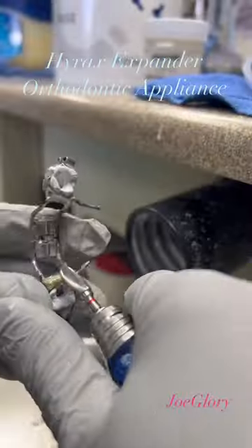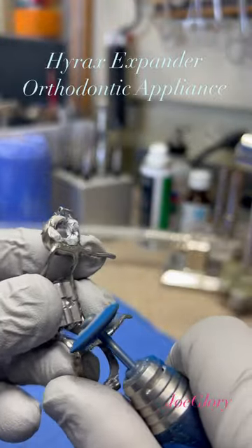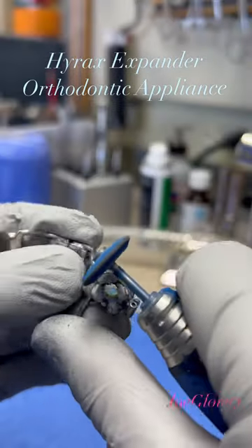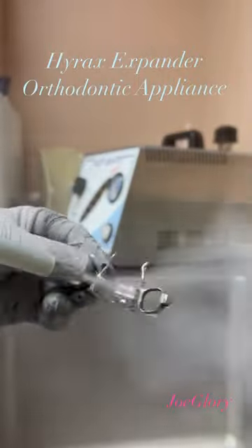Fast forward — I'm trying to make it clean, trying to make it polished. I'm smoothing everything out, trying to get all those edges smooth.